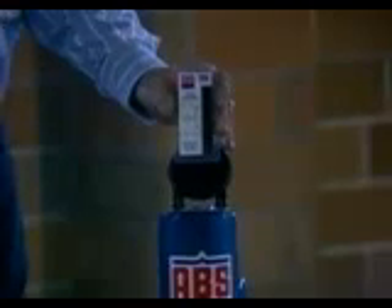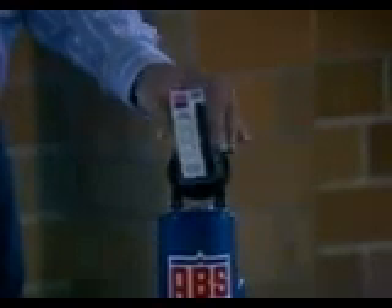One of the most critical things for doing AI is to make sure that your thawing water bath is at a temperature of 35 to 37 degrees centigrade, or 95 to 97 degrees Fahrenheit.